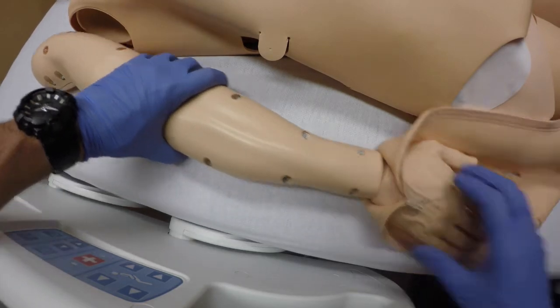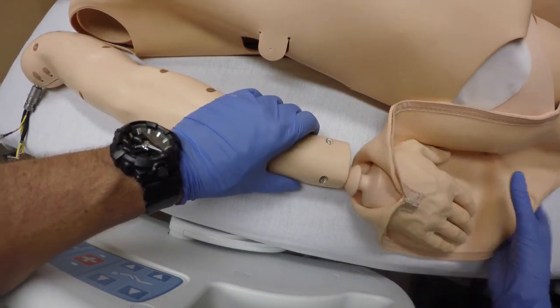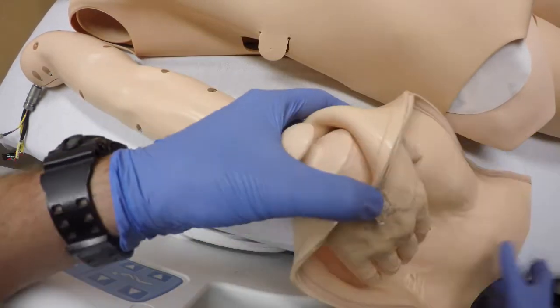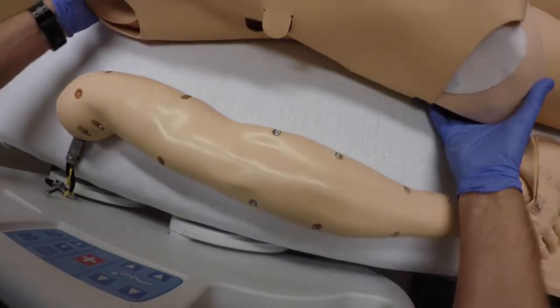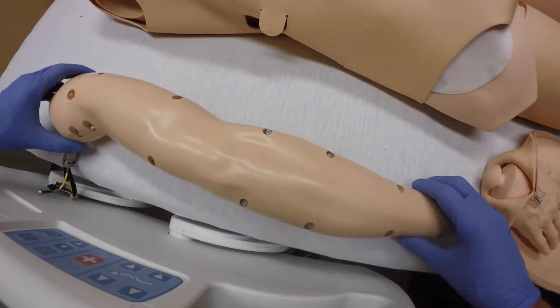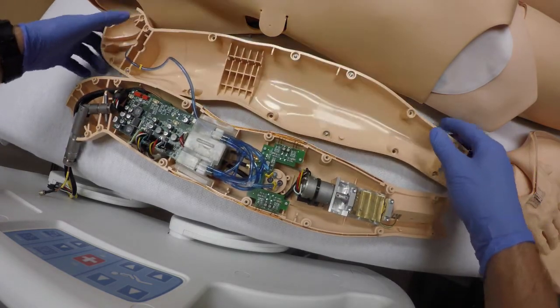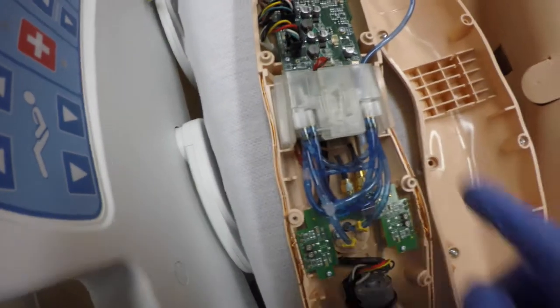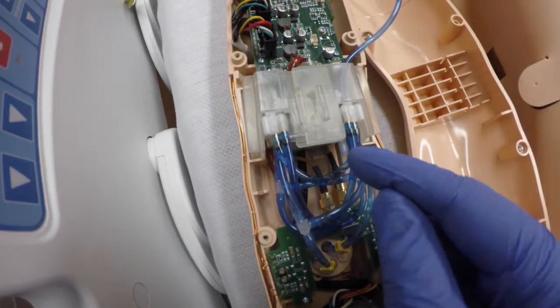Okay, now we're going to release and remove the hand of the skin — just going to slide it over, it just slips out. It's held on by this little cup here. Then we're going to lift this off and roll it over to the back side. All the screws are going to fall out. Here's the mechanism I'm referring to — this fluid chamber here is what pushes the fluid through; it's a pump of sorts.